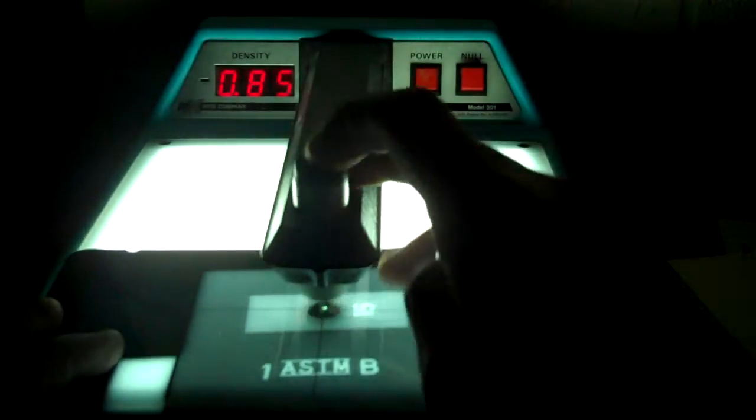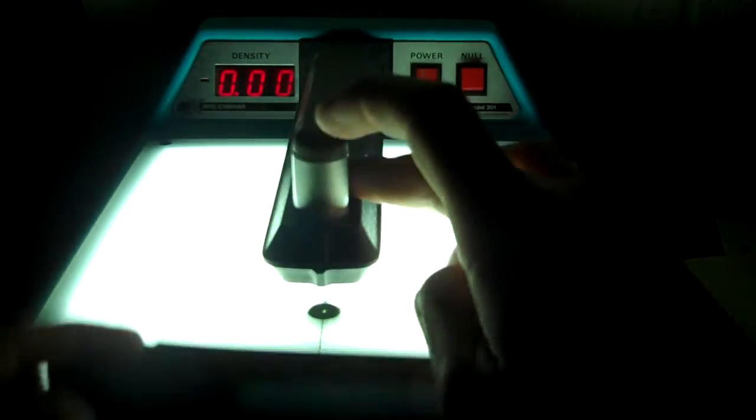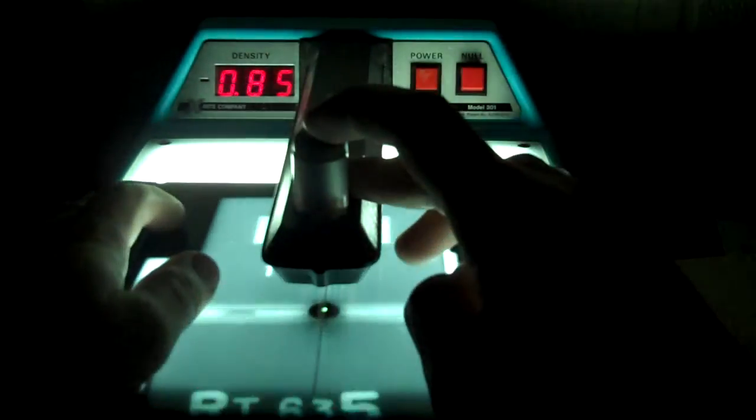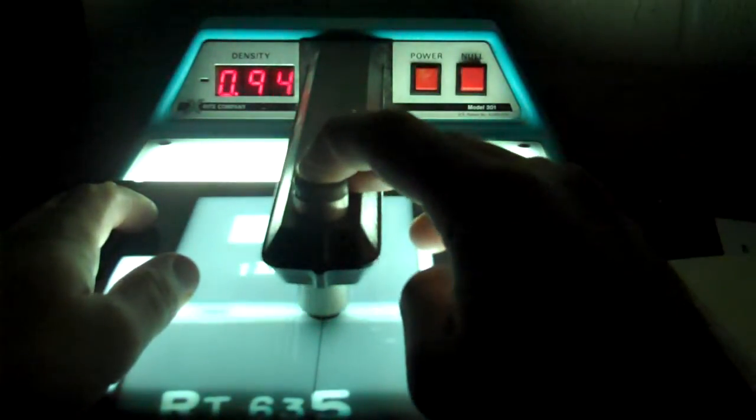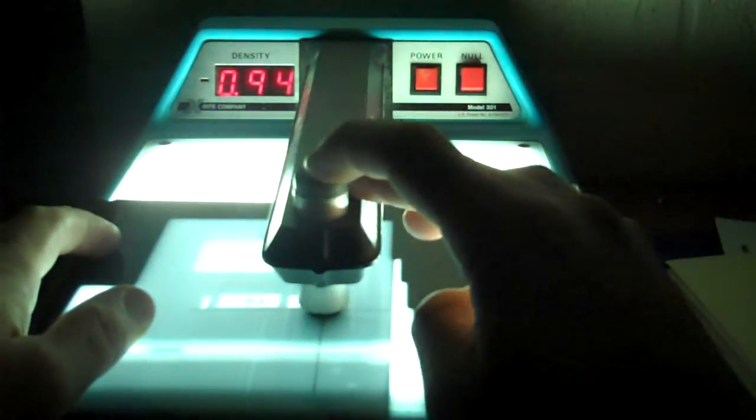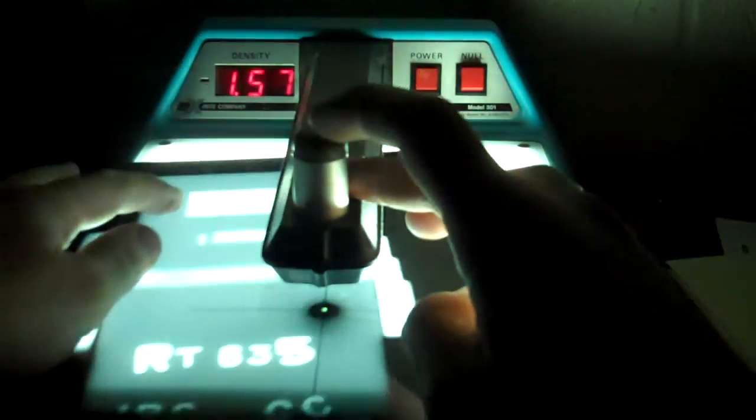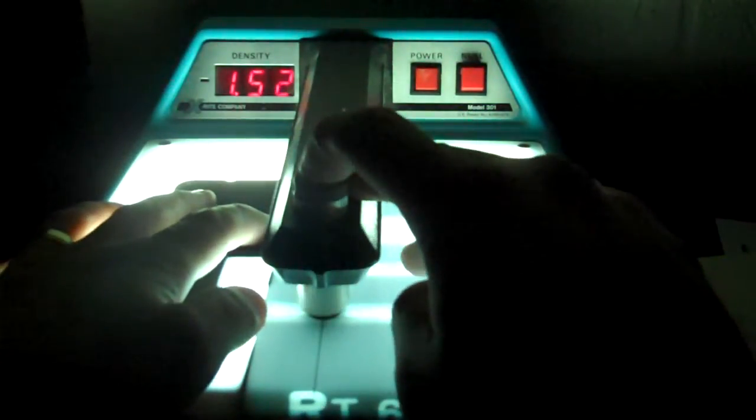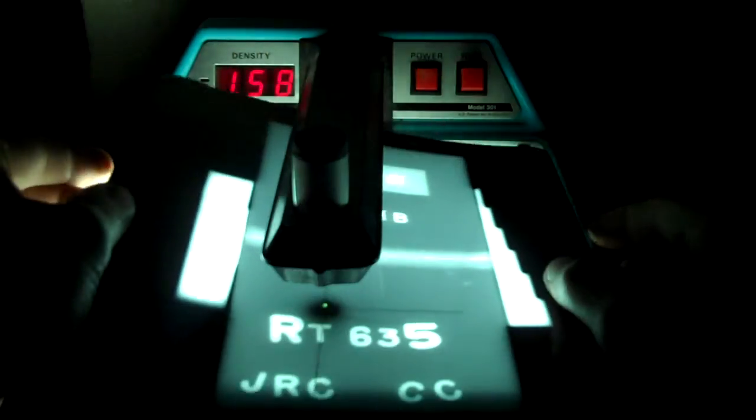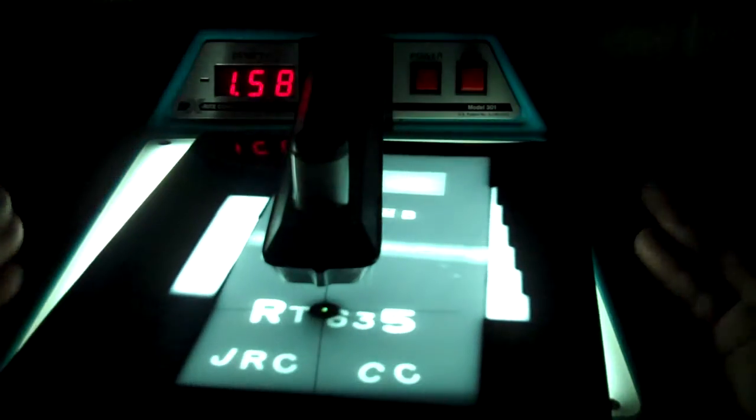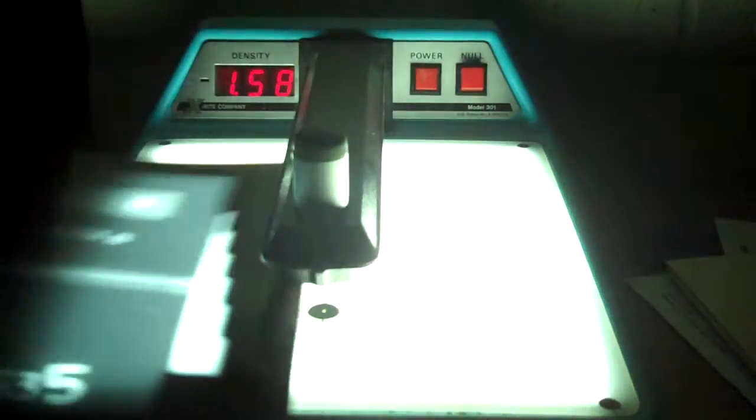Density again, 0.85. We better make sure it's zeroed out still. It is. So there's our 0.85. And we know here this guy's way too light. It's only 0.94. 1.5. And there's not one place on here that's dark enough to even run this out. So we know that right off the bat, we ran a manual process. It came out lighter because I ran these films together. These two films I processed together, took the x-ray together. I ran one through the automatic, then I ran this one through the manual. So that tells us that our manual processing chemicals are cooler. So we need to go back and run that longer.